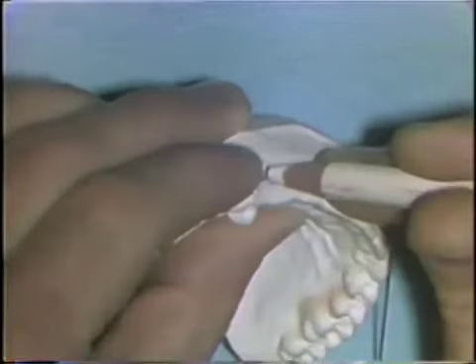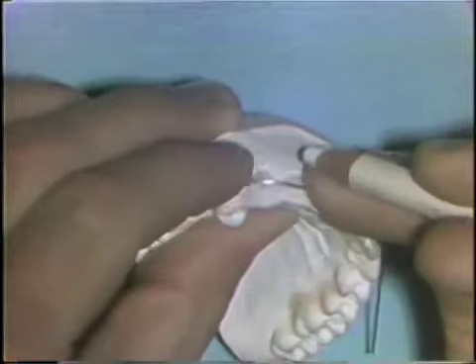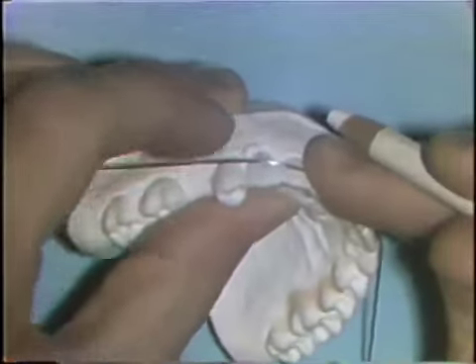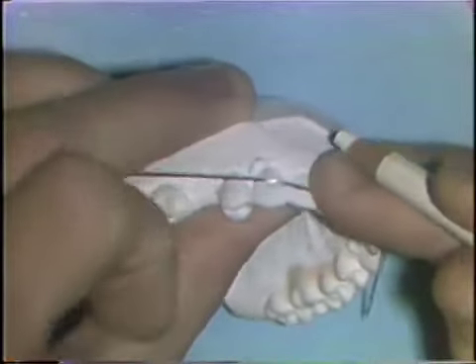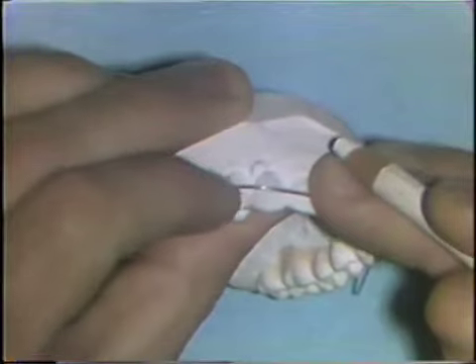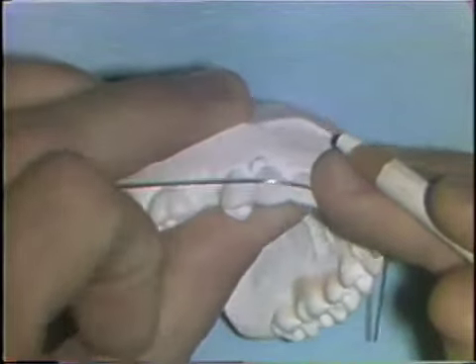The wire is marked at the middle one-third, or at the very middle of the cuspid tooth mesiodistally, to indicate the spot where the 90-degree bend is made to start the loop construction.